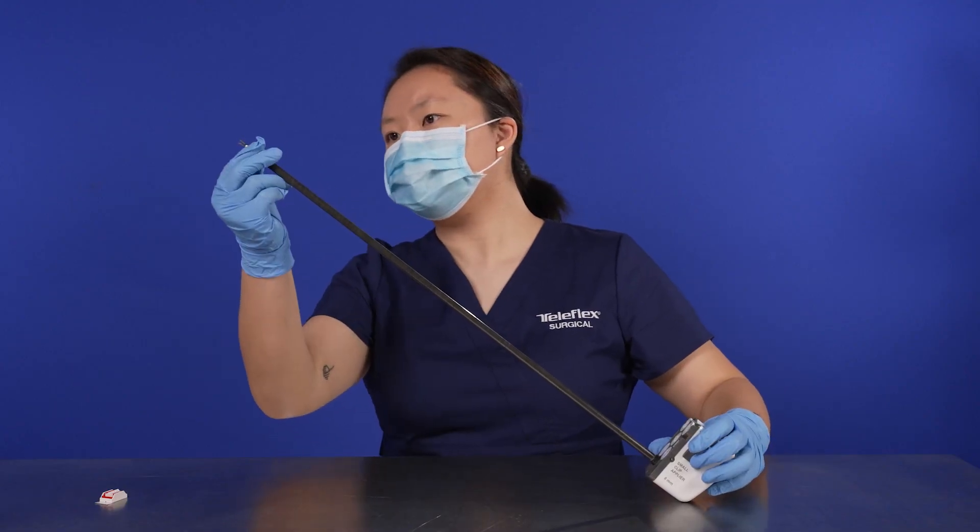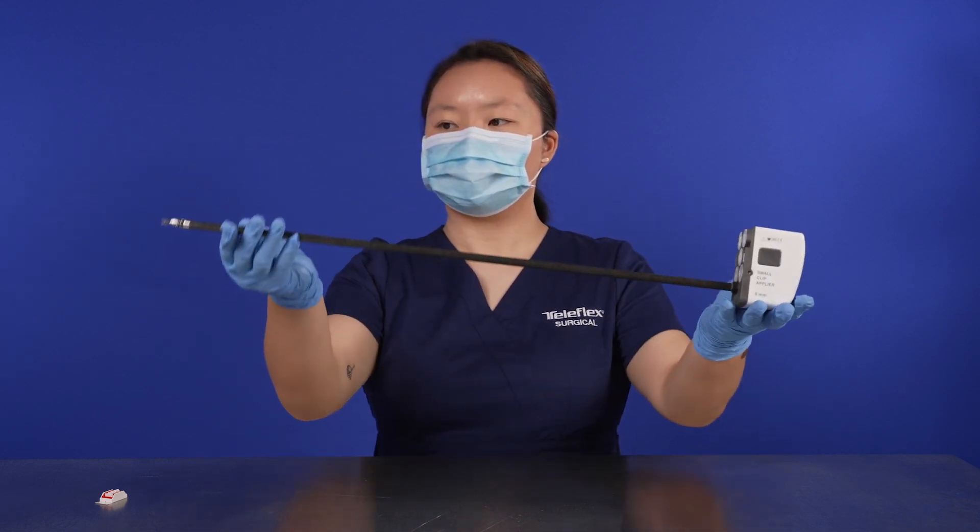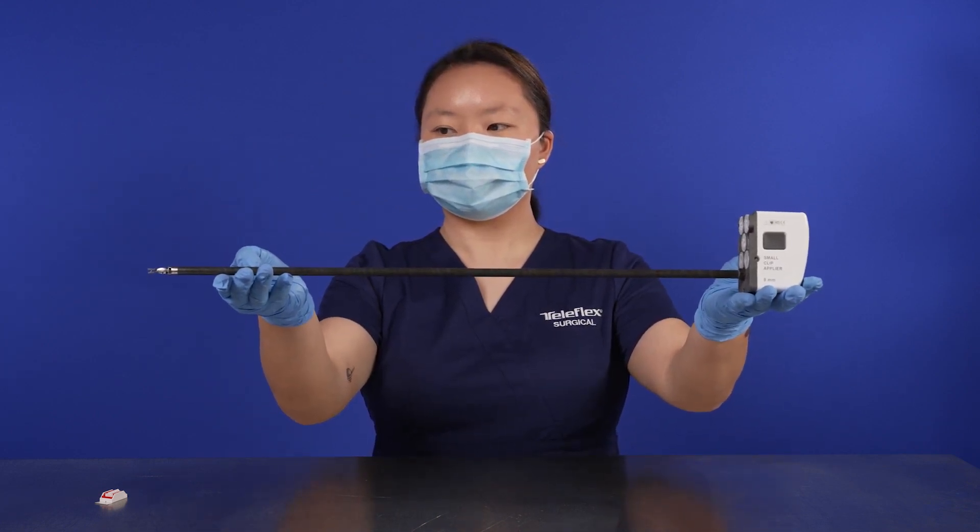The clip should be seated firmly. Avoid touching or squeezing the jaws, which may cause the clip to compress or fall out of the instrument.